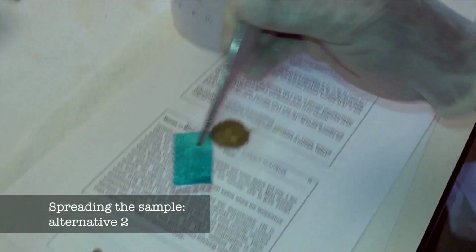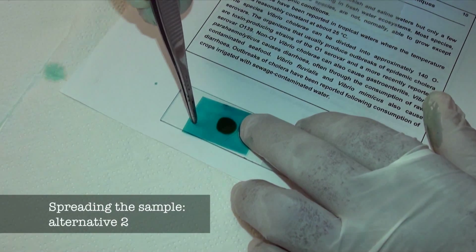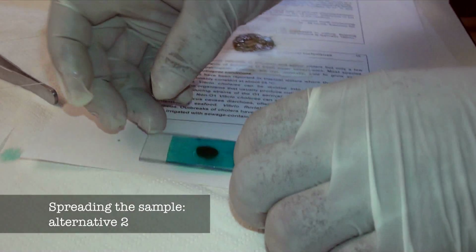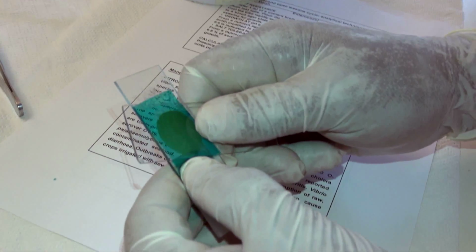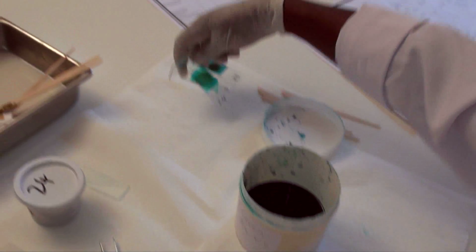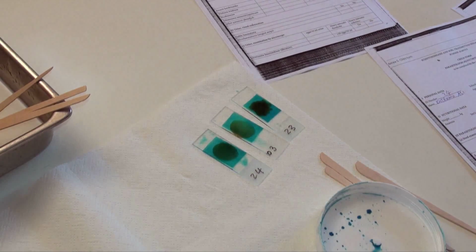An alternative procedure to distribute the fecal material evenly is to cover it with the cellophane strip, and then press a clean microscope slide against the cellophane-covered area of the sample slide. Gently slide it sideways to avoid separating the cellophane strip or lifting it off. Place the slide on the bench with the cellophane facing upwards.